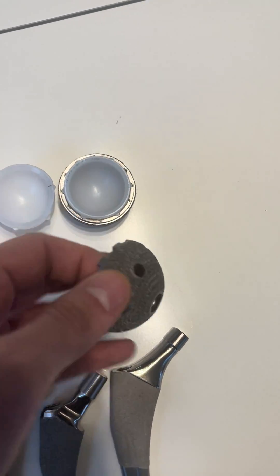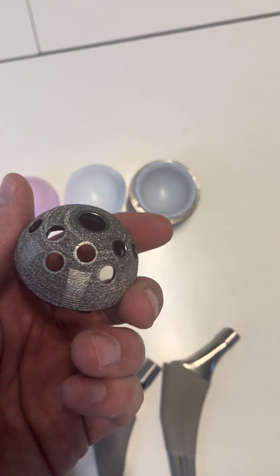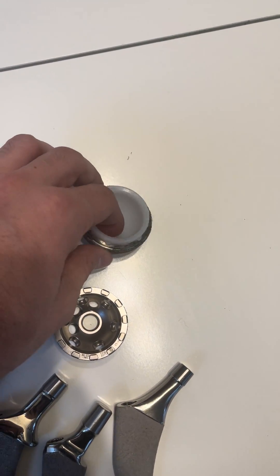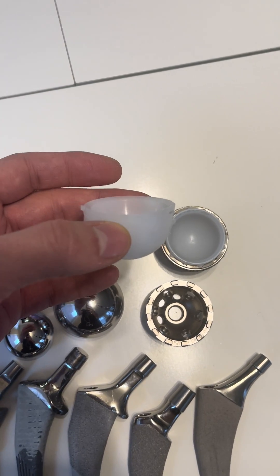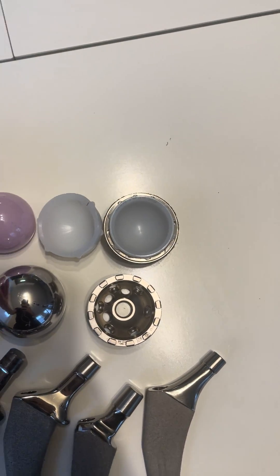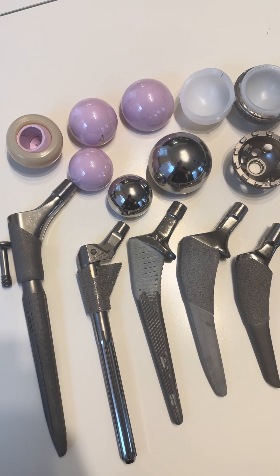This is the cup. The cup has a porous coating on the back to ingrow into bone. It has multiple screw holes in case you need extra fixation. The liner locks into the cup like so. There are different types of liners with offsets if you need them or more constraint. That's kind of the lowdown and rundown on hip implants.